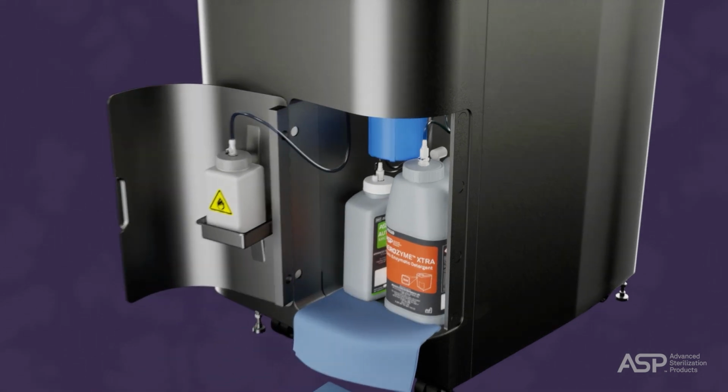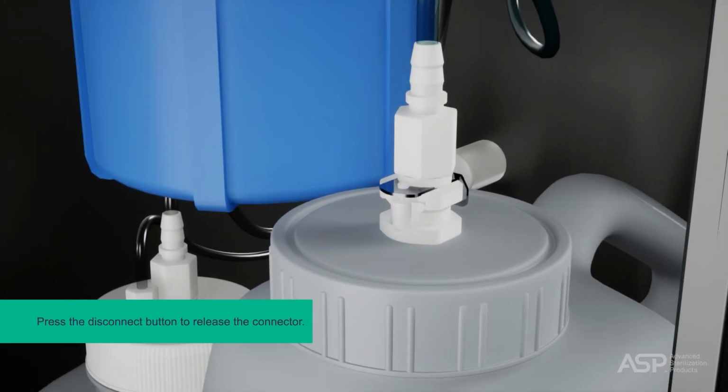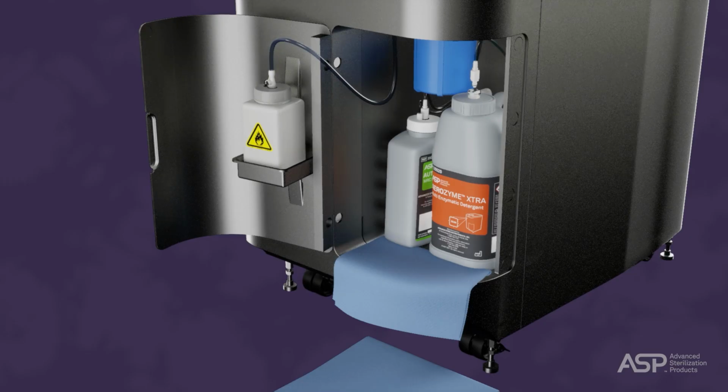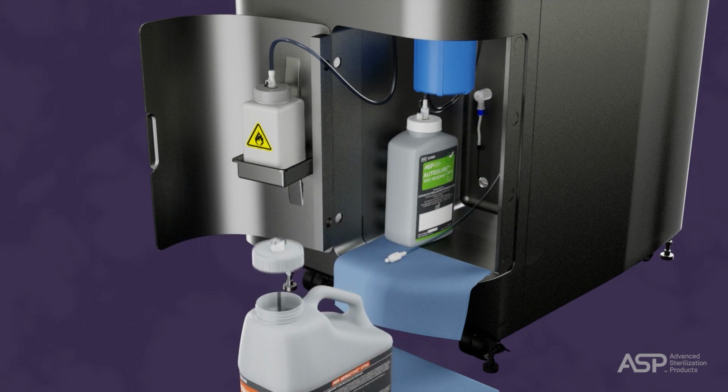The tubing attached to the detergent bottle cap has a disconnect button on the connector. Press the button to release the connector and lift the tube off the cap. Then set the tube on a clean towel and remove the used bottle from the compartment. Now remove the cap and the dip tube from the used bottle and place it on a clean towel.